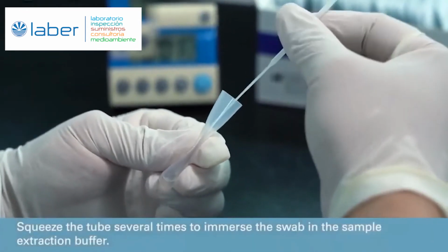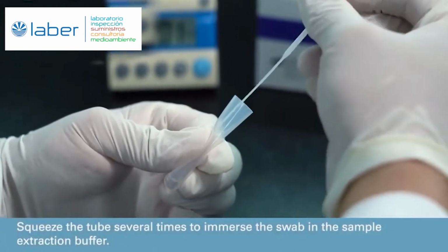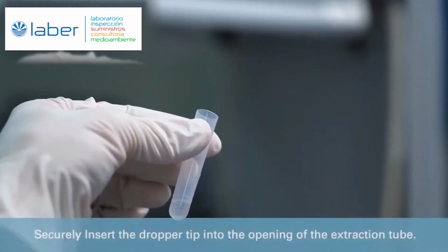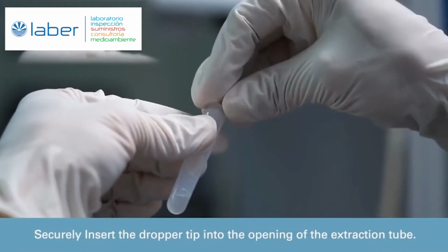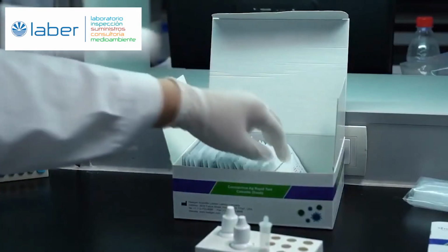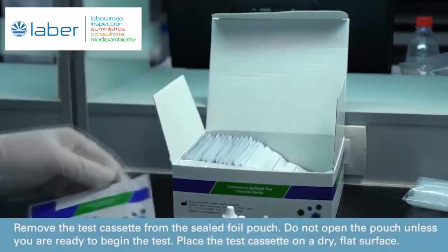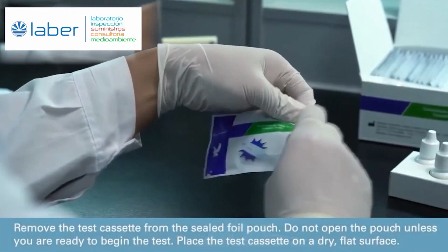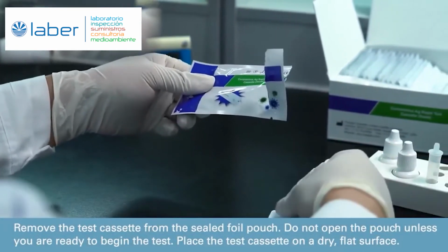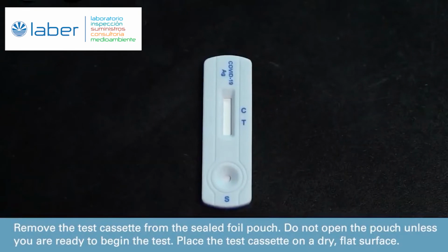Squeeze the tube several times to immerse the swab in the sample extraction buffer. Securely insert the dropper tip into the opening of the extraction tube. Remove the test cassette from the sealed foil pouch. Do not open the pouch unless you are ready to begin the test. Place the test cassette on a dry, flat surface.